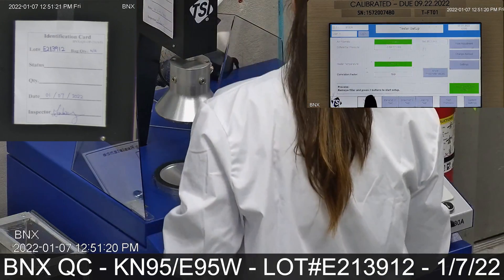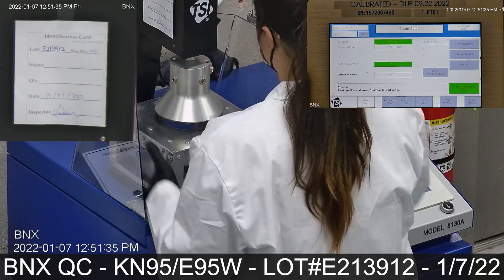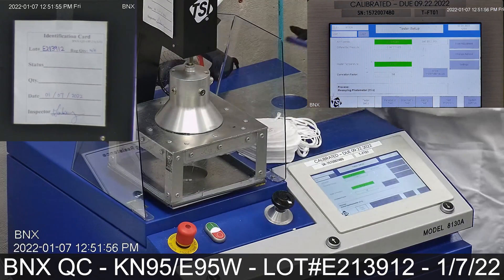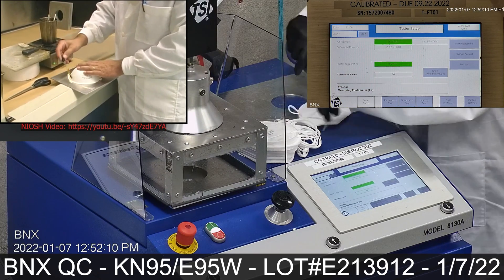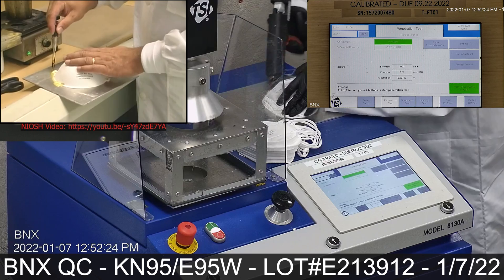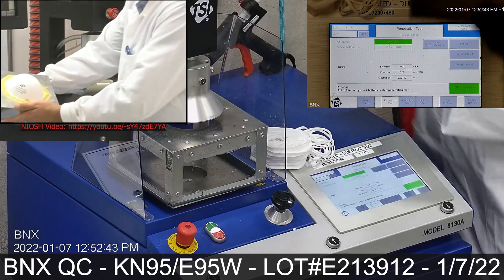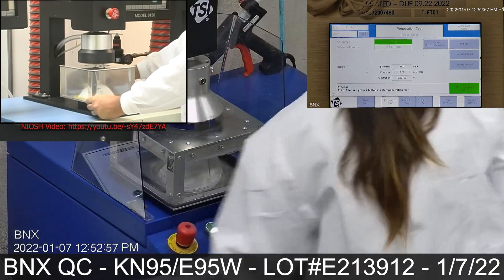Let's proceed with the filtration efficiency testing on these masks. First, we make sure the mask or respirator is properly and completely sealed with beeswax or hot melt glue to the testing plate. The testing plate is then attached to the frame. Next, the box is put into the TSI filter holder for testing.